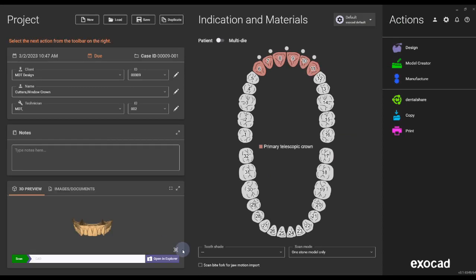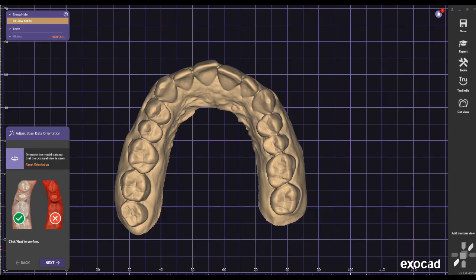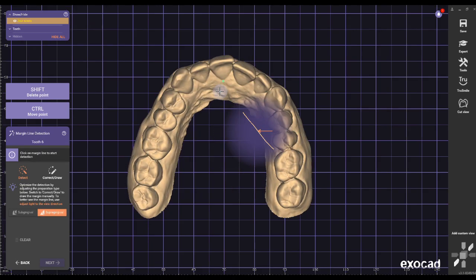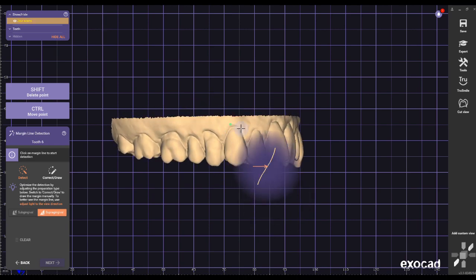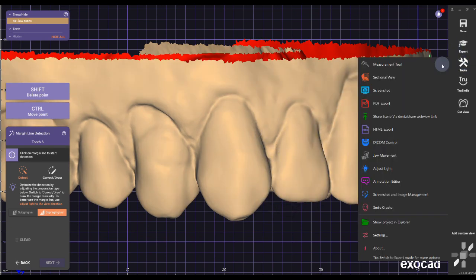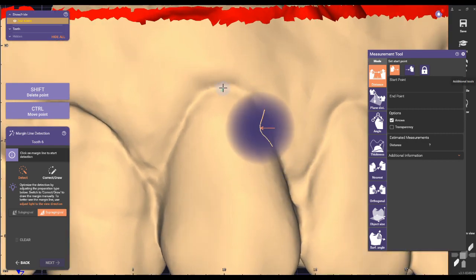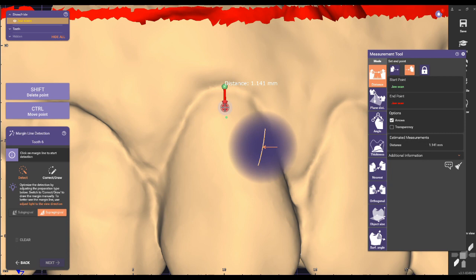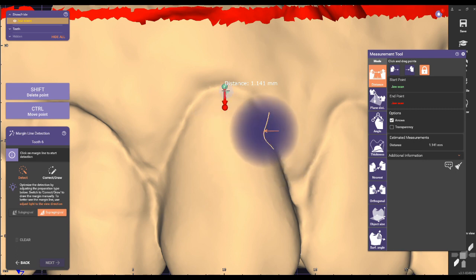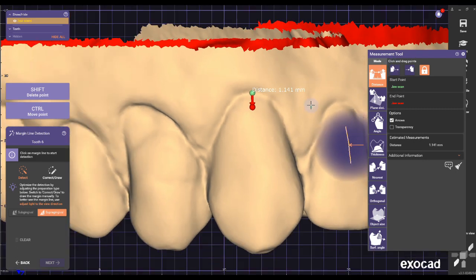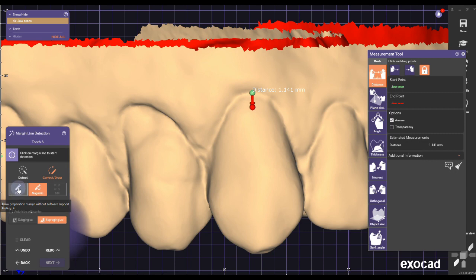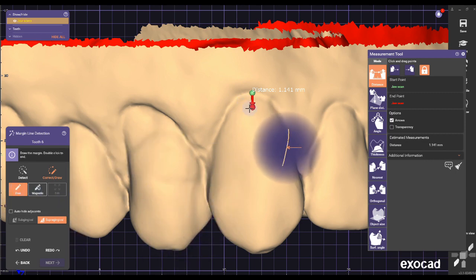Hold the Shift button and click — in this case, number 11 — so they all get marked. Use exactly the same model you orientated in ExoCad. Then you're going to mark the margins as you'll see in the window. Go to Freeform and start marking your margins.